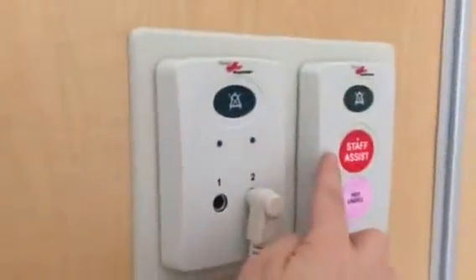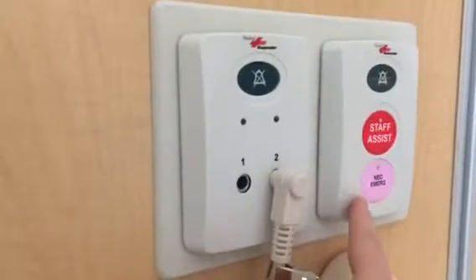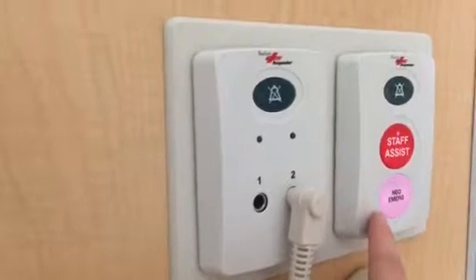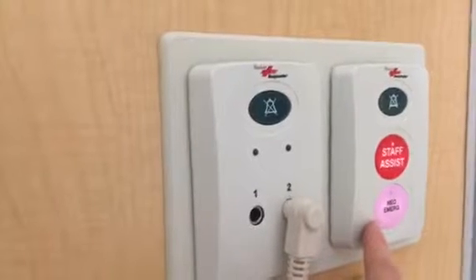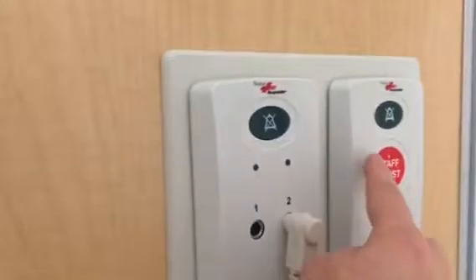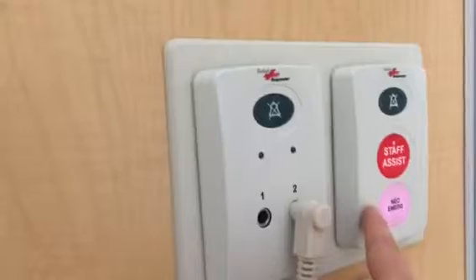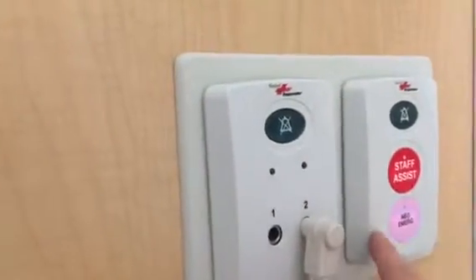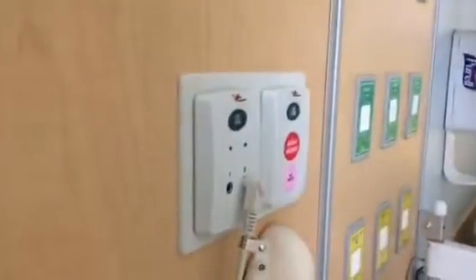Over in the head wall, you have similar buttons. So you have Staff Assist, which gets you your MAs, RTs, and RNs in the area, not providers. And then NICU emergency, which is the same as the NICU emergency I just showed you on the touchscreen. It will create blinking pink lights above the door. It will call an emergency, so everybody in the area will come running to you as if it's a code. Staff assist sets off red blinking lights and gets you help. So this is I need hands, and this is a code. To silence either of these buttons, I have to go to the place of origin, so I'm going to silence it here. This is the nurse call bell.